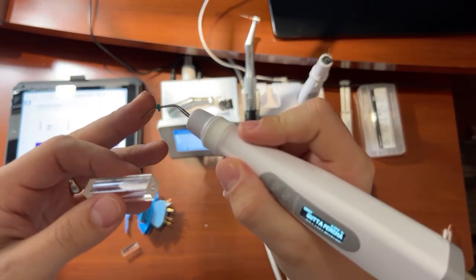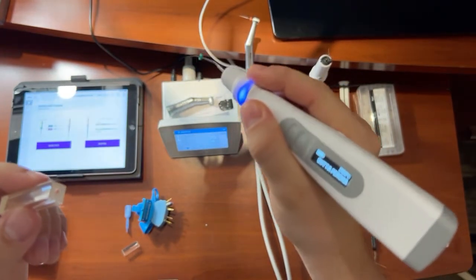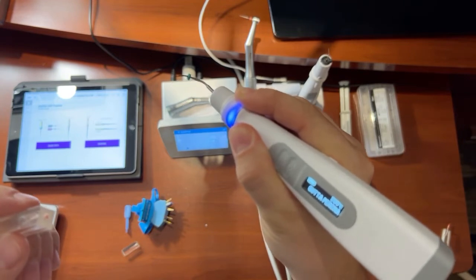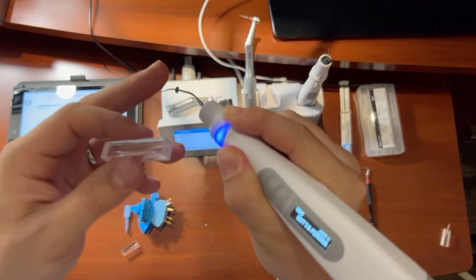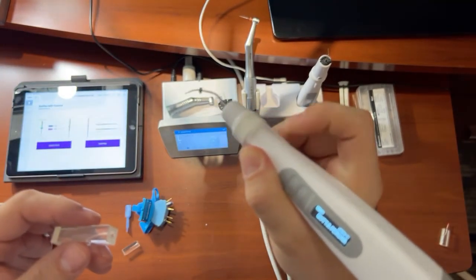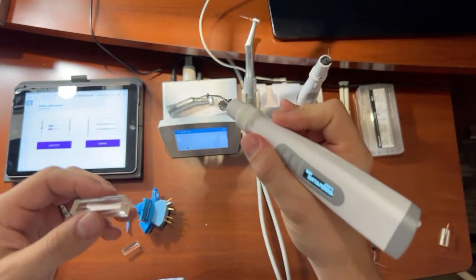It's not burning my finger. And then another cool aspect to it is if I hold this for 4 seconds, 1, 2, 3, and 4, it actually has a safety feature. So this blue light is still on, but I can still touch that and it's not going to burn the patient. So just nice to know, so you're not going to burn the surrounding PDL.